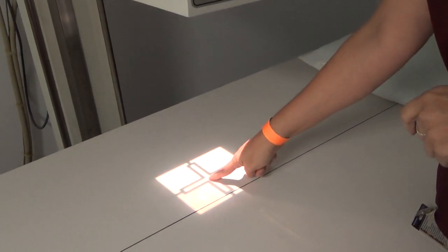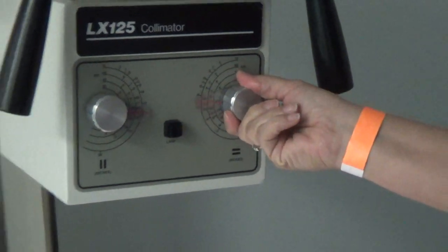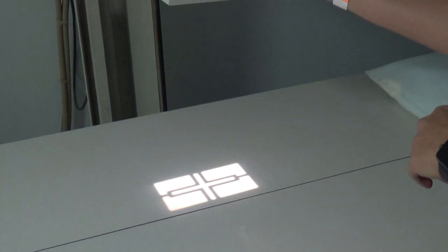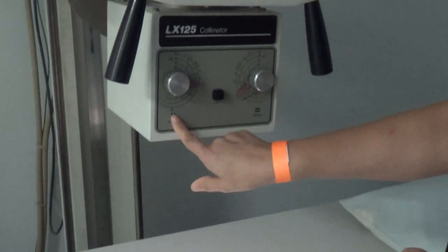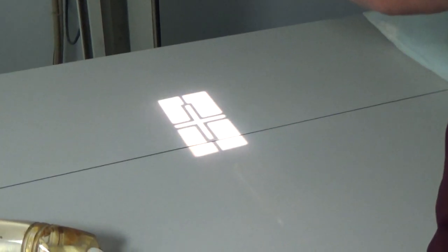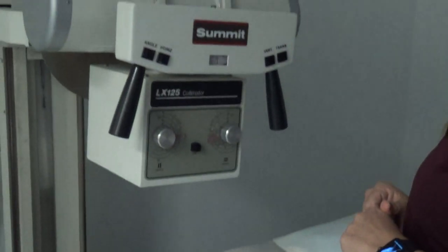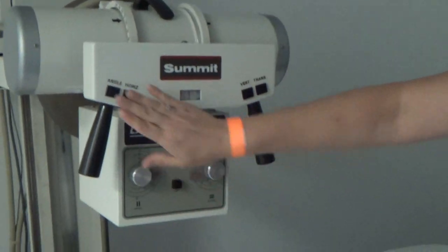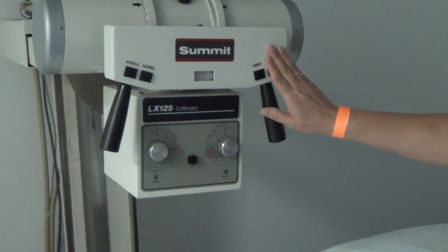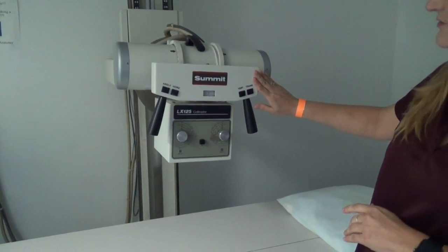So this is your central ray. Inside of this box, you have two sets of shutters. These shutters here are for the top and the bottom, so you can make your changes to your radiation field this way. This one here is for the changes of the shutters to the left and to the right. So you have that variance of whatever size radiation field that you want. On the front, you have the buttons that are going to help disengage the locks so that you can actually move this tube housing into the position that you need.